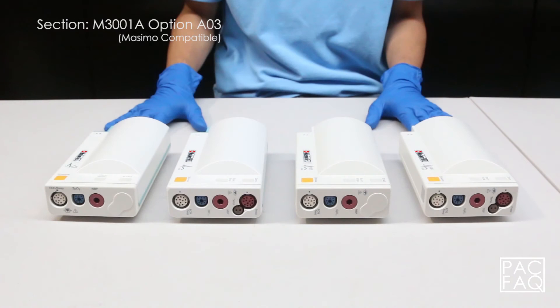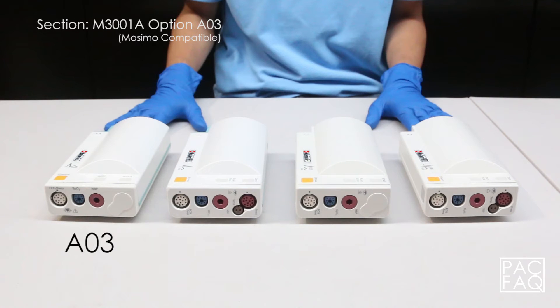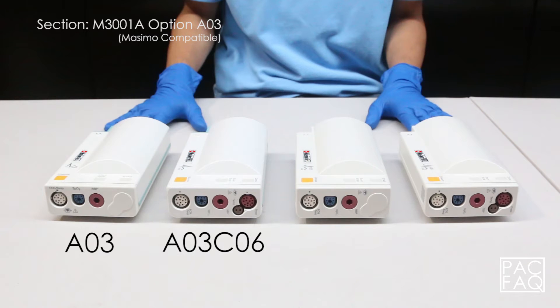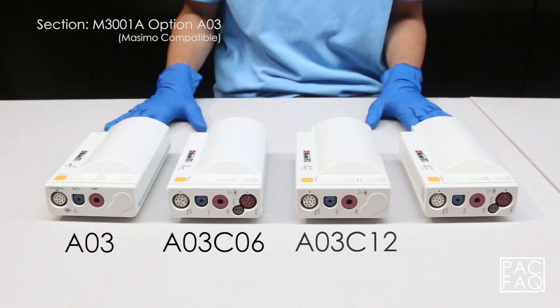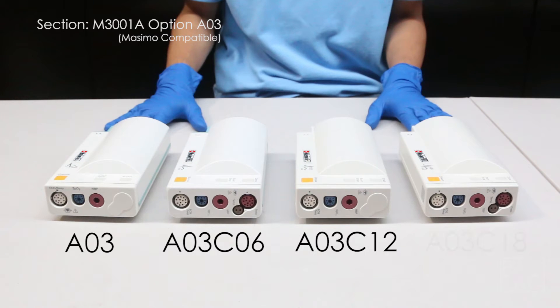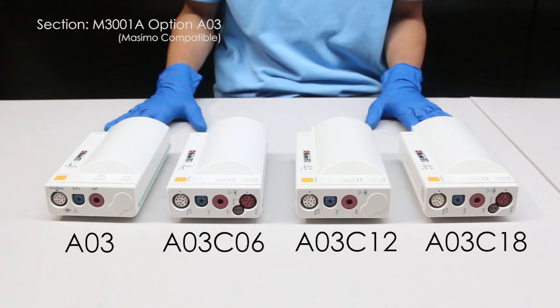In section M3001A module option A03, Masimo compatible, we will talk about the options and parameters that come with each unit. First we have A03 standard, A03 C06, A03 C12, and A03 C18.